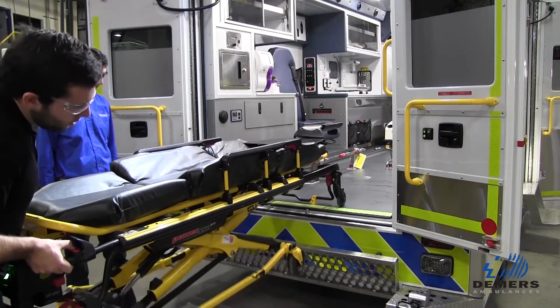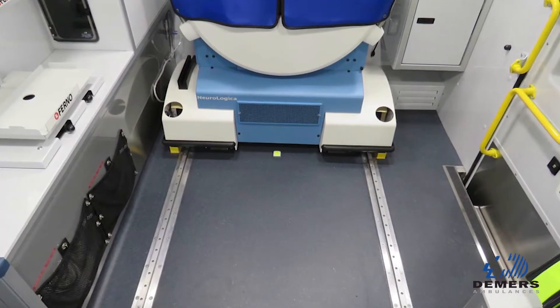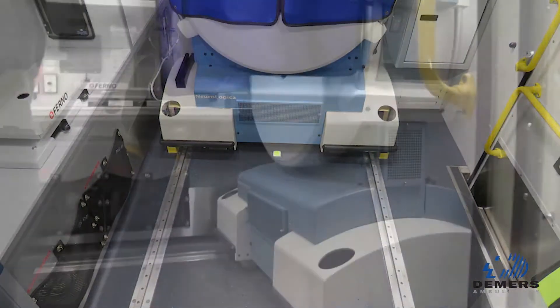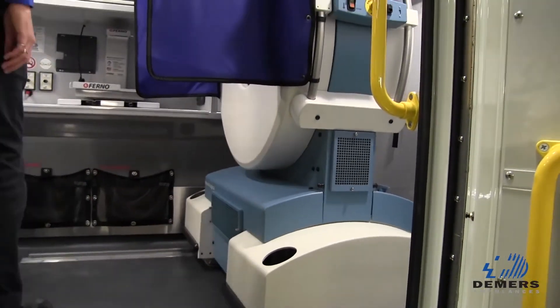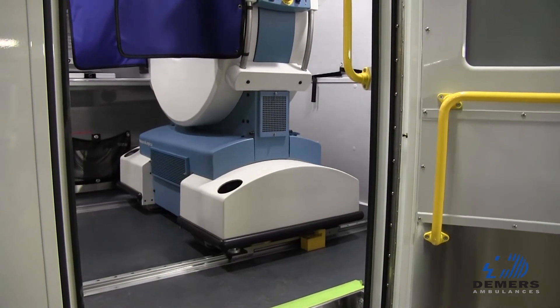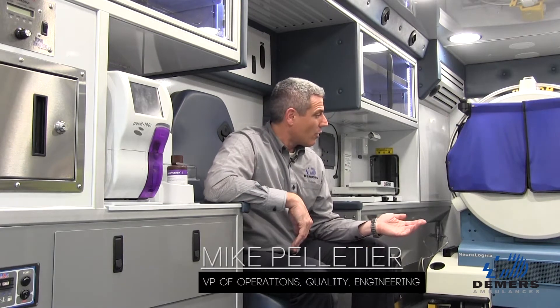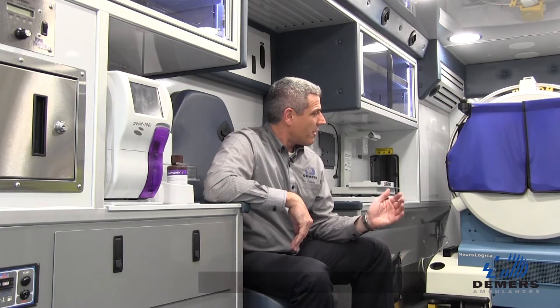We're also able to have a continuous floor covering even underneath the scan, instead of having a large metallic structure underneath, which would create a heat sink for the vehicle. The flip-out step allows us to have a flat floor that creates a clear workspace from the forward to the rearward workstation for the technician.